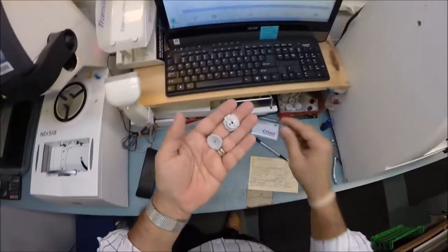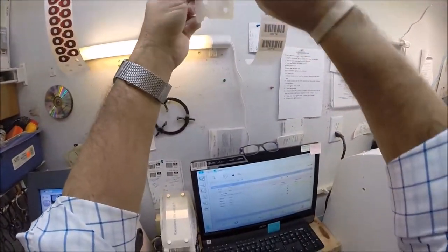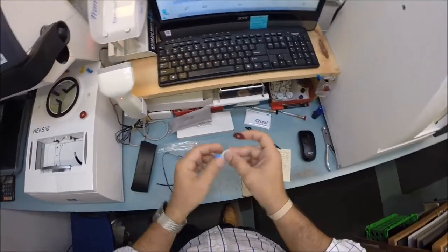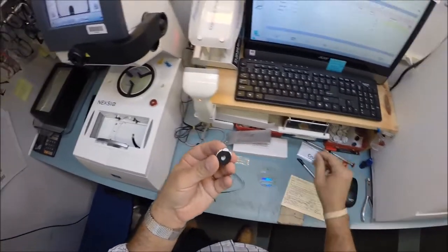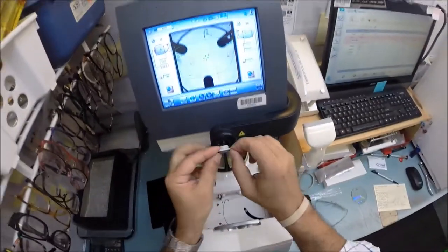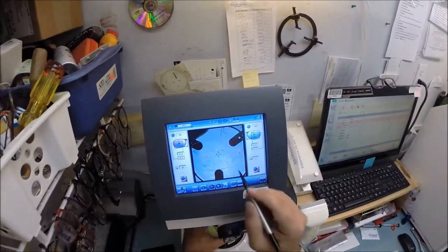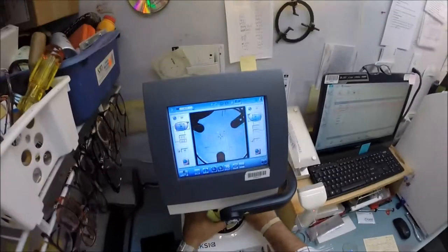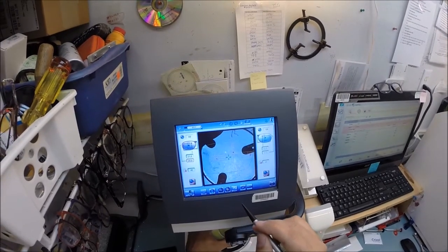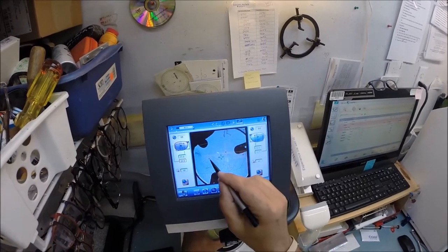I need a block — or as I like to call them, Jenny from the block — I need to attach this to my lens while it is cutting. This is what's going to hold it in place in the lathe. I need to put two double-sided adhesive stickers on there. The black side is the sticky side. I'm going to stick that onto the first block, then do the same thing for the second block. Pull the paper away to make the black side sticky. On the back is a magnet — it's going to attach itself to something magnetic in the arm. My stylus: 31 pupillary distance, 20 OC height. I'm going to place that dot right there, move things around so I can see the edges of the lenses, and get everything lined up on center.